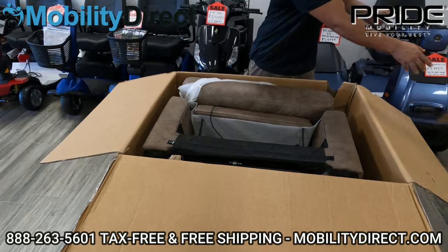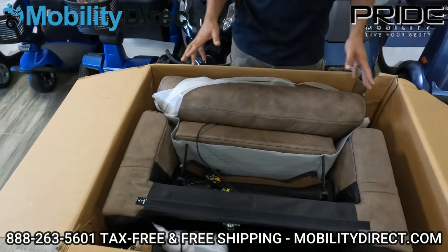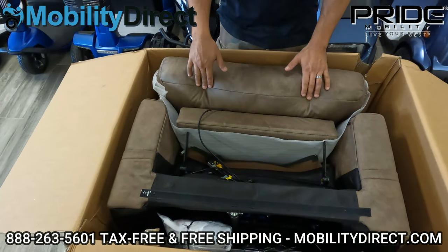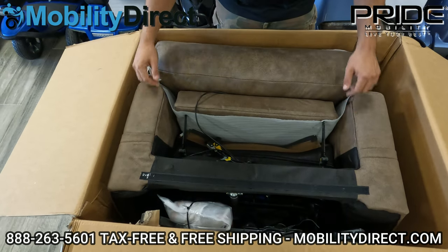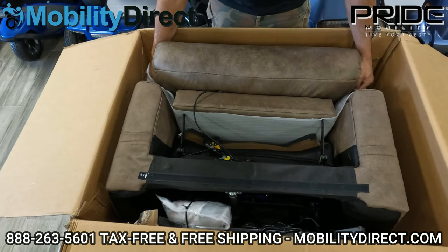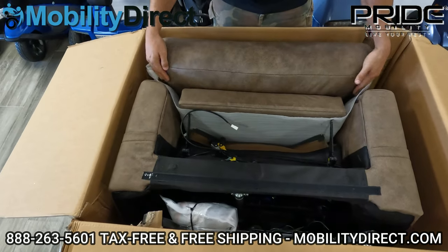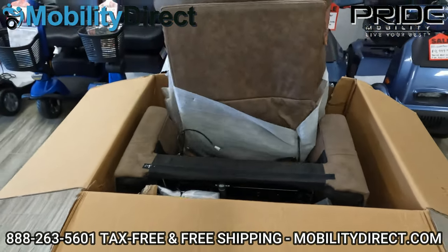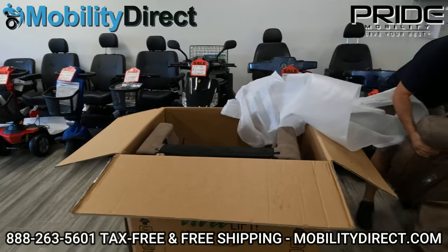There's a basic cover on the top — cardboard with some silica packets, desiccants to keep everything nice and dry. I'm on the side where the backrest has slid into the box and is sitting on top of the base. So what I do first is grab this backrest, making sure the cables aren't lodged in there. The backrest can come right out, so that's usually my first step — take the backrest out and lay it down.